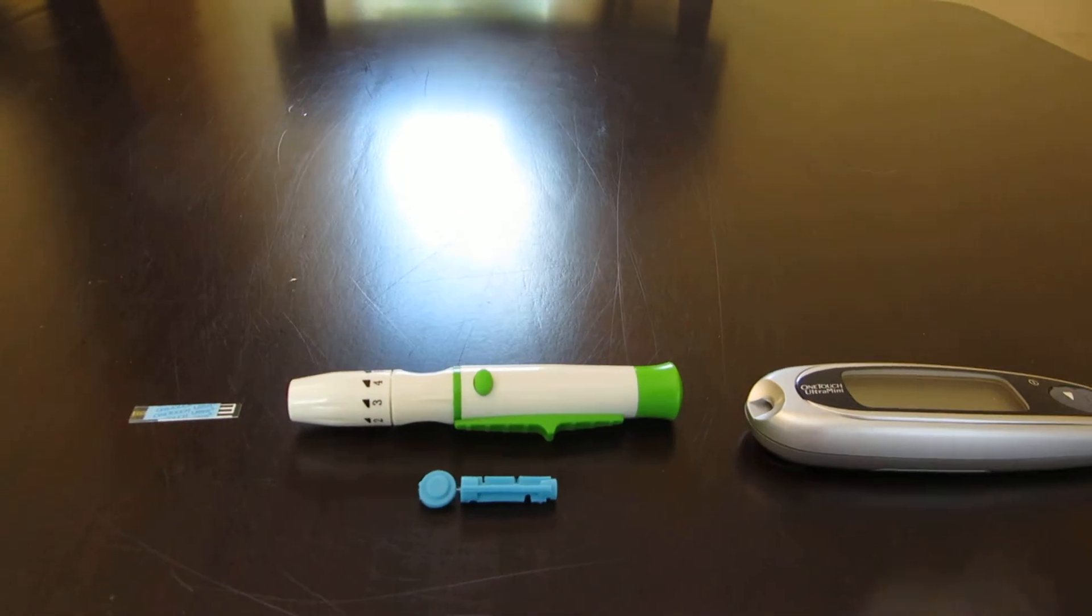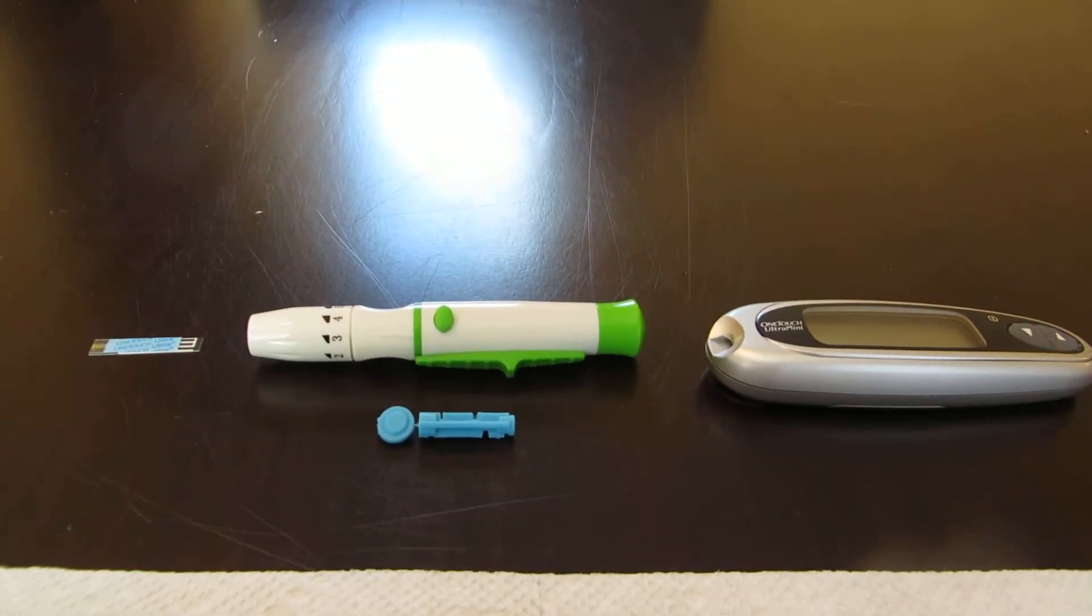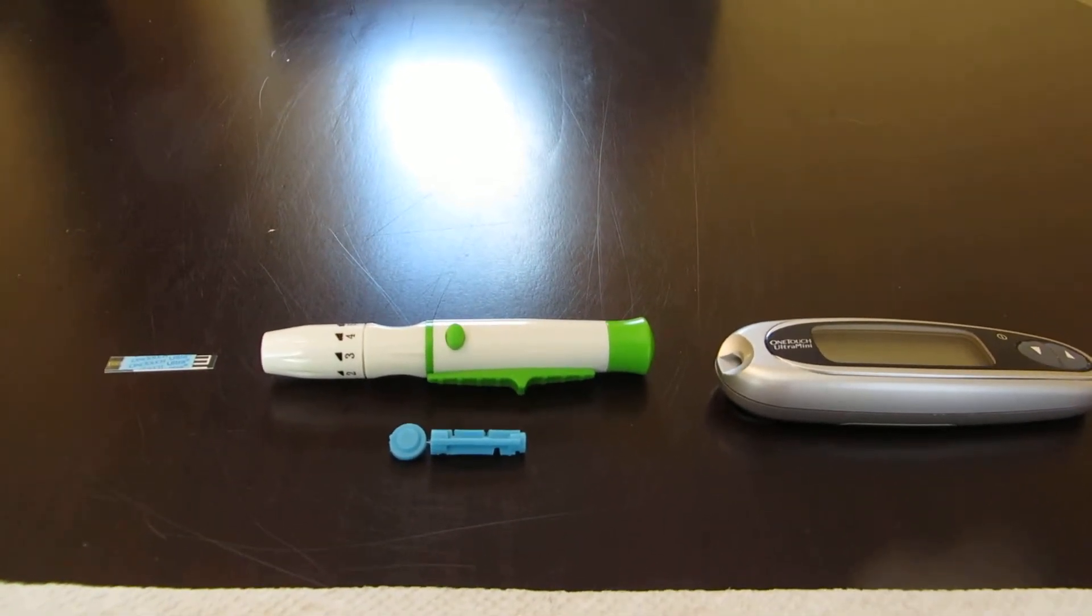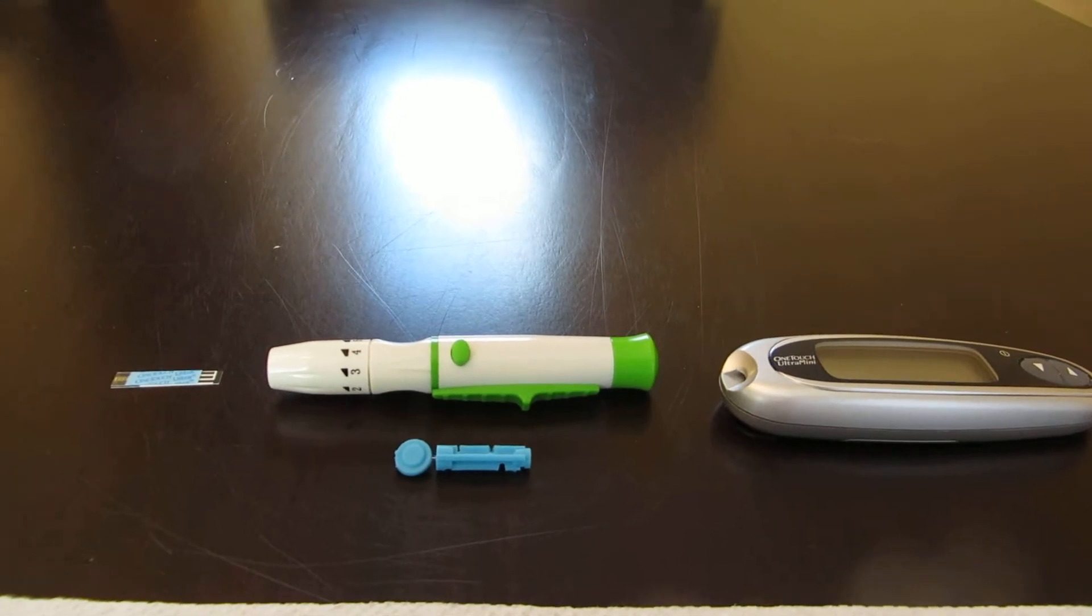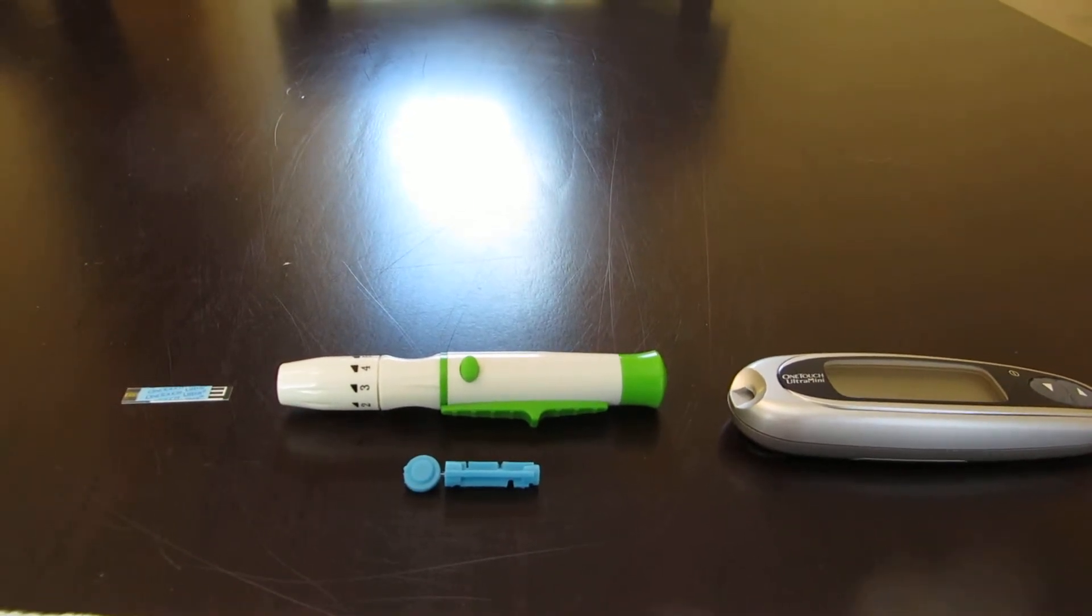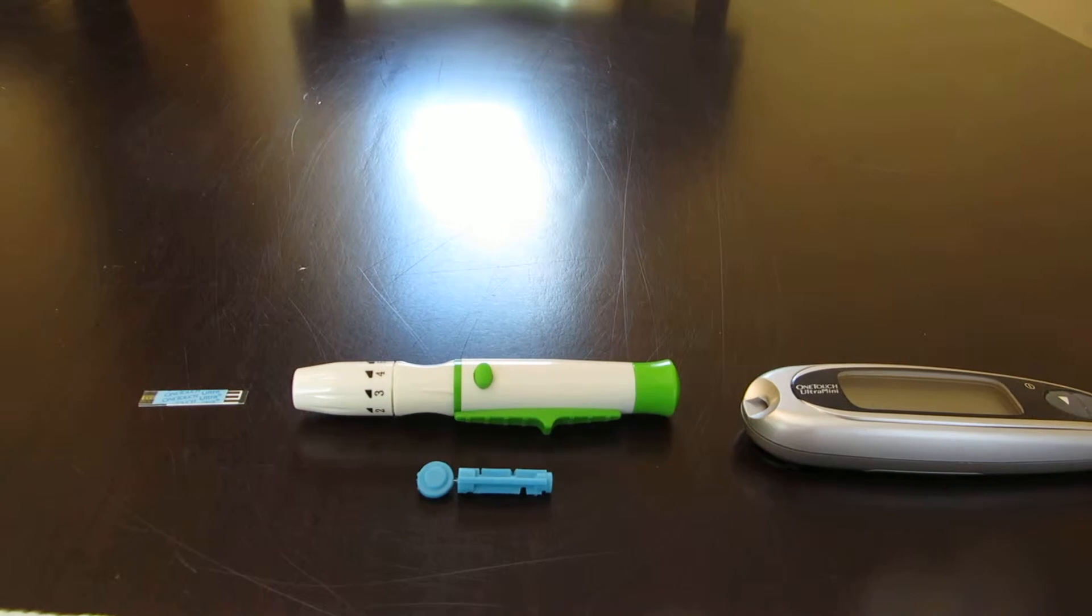All of these items come in different shapes and sizes depending on the brand, but pretty much all work similarly and you can get the gist from this video.